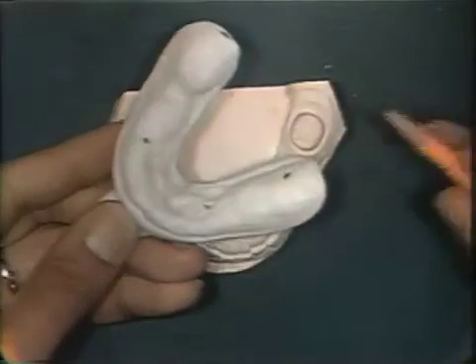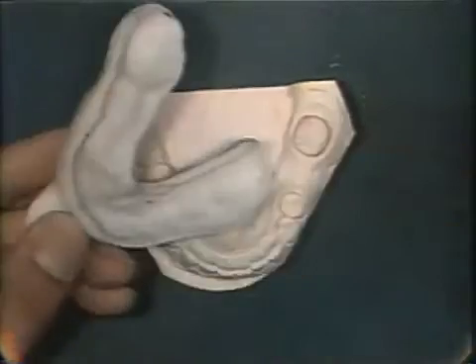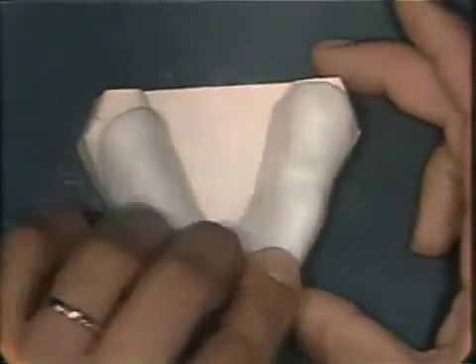The asbestos liner is saved and rolled into a cigar length, which will aid in selecting the correct amount of rubber based material to fill the tray. Note the stop areas on the tray in the molar region and the cuspid regions and in the soft tissue behind the molar preparation.